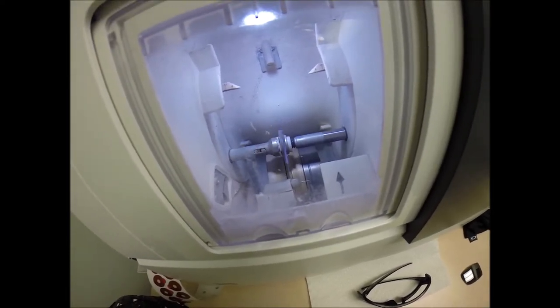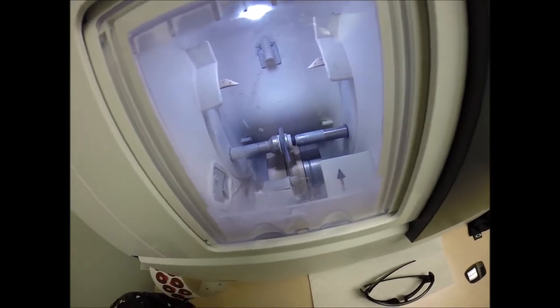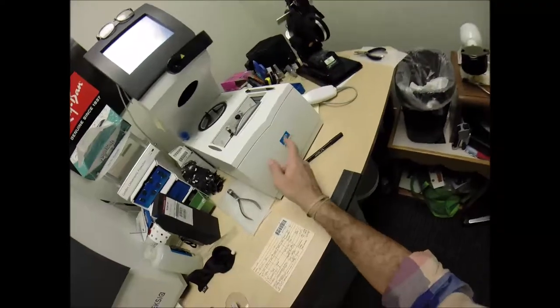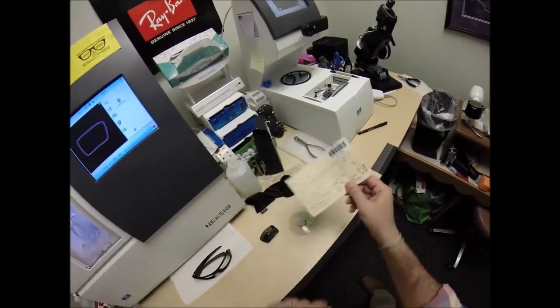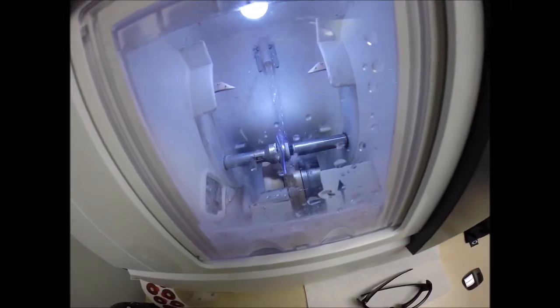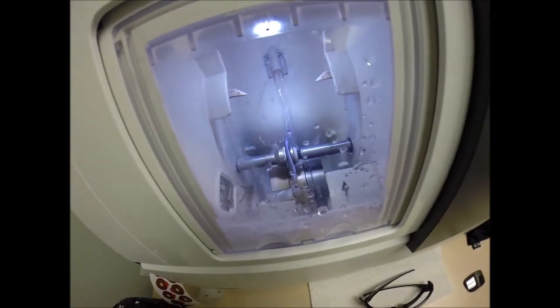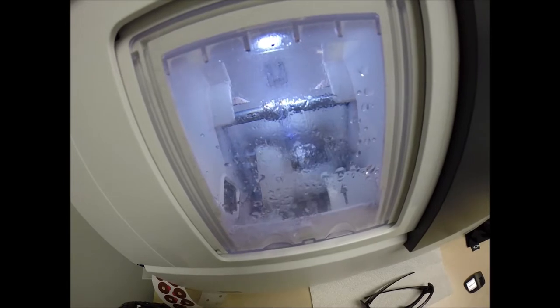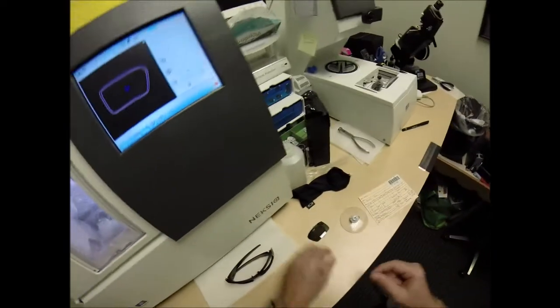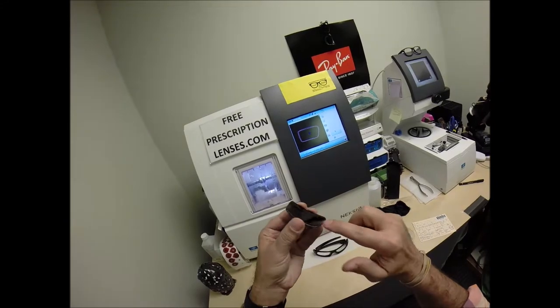We know what the sun's harmful ultraviolet rays can do to your skin there in Biloxi, Mississippi, where your eyes are eight times more sensitive than your skin. So you have permanent sunscreen for your eyes. It is putting the bevel placement slightly at an angle to follow the curvature of the lens.